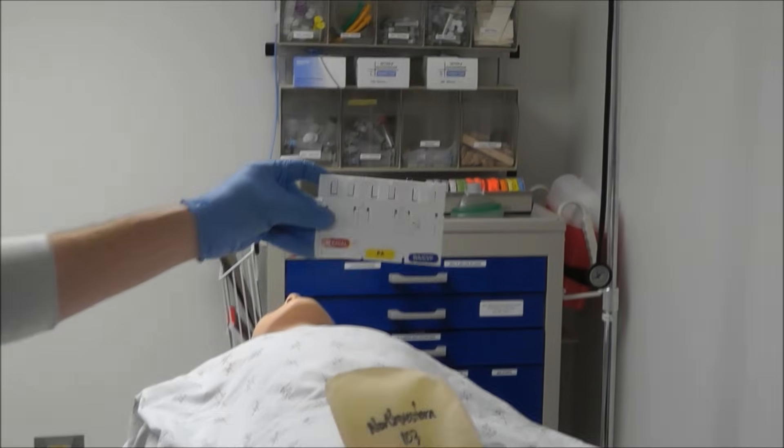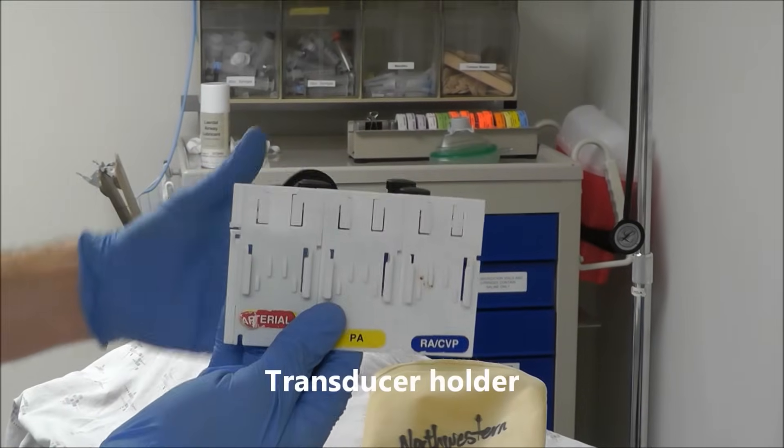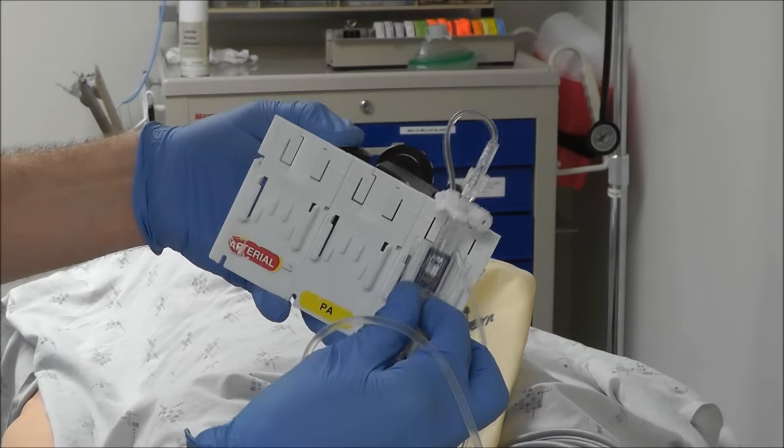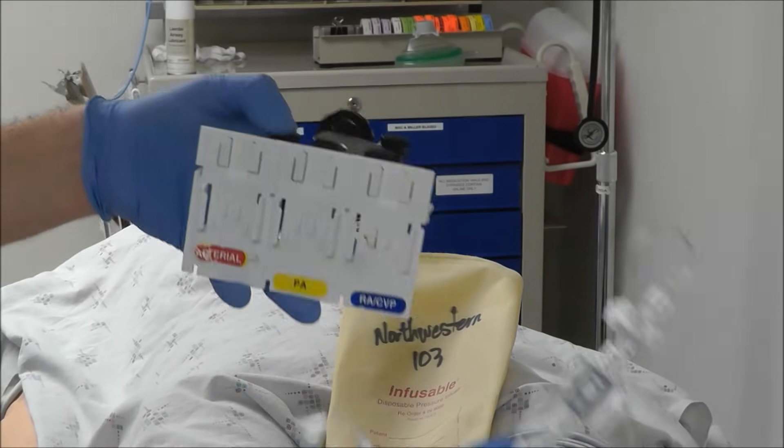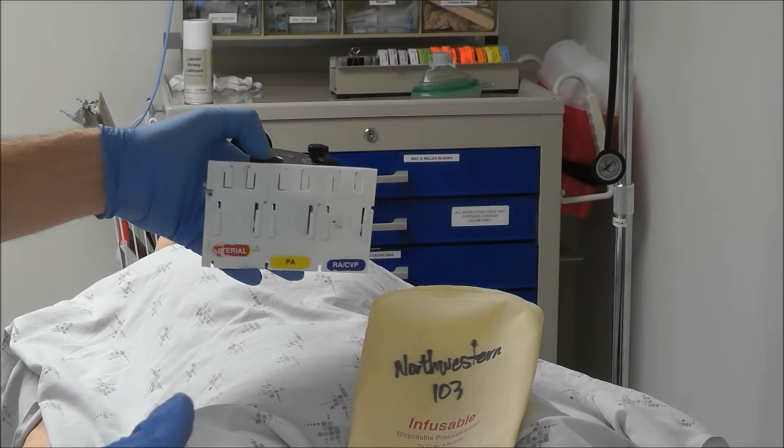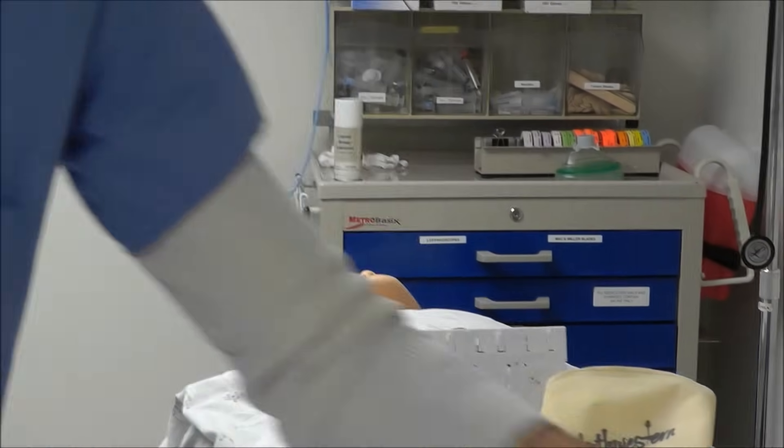And then the last thing that you're going to need is something that will hold the transducer into place so that you can hold it at the level of the heart. So those are your materials, and now let's talk about how to set up.